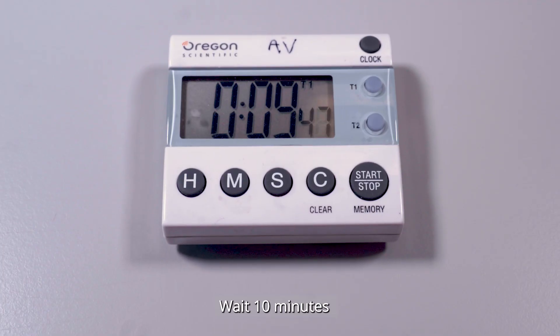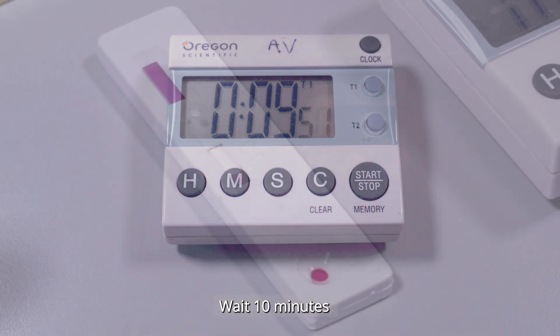Wait 10 minutes to read the results. Waiting more than 10 minutes could lead to false positive results.